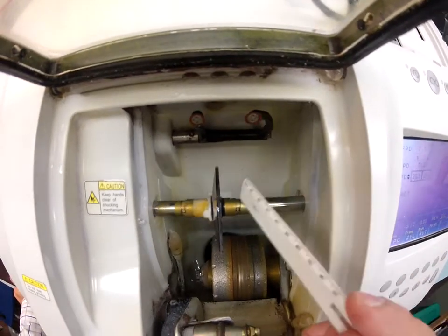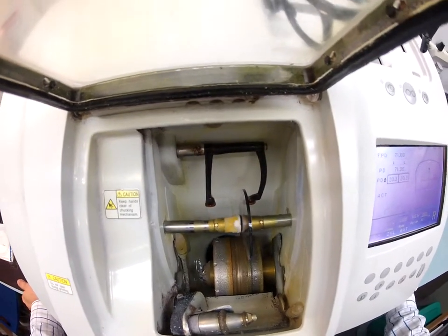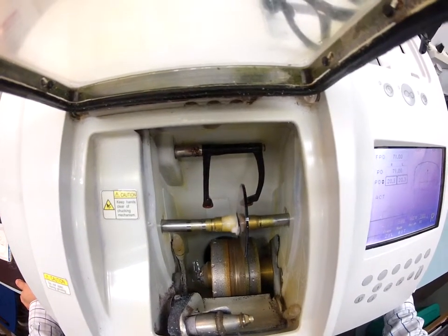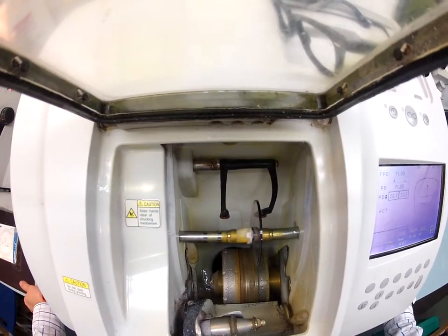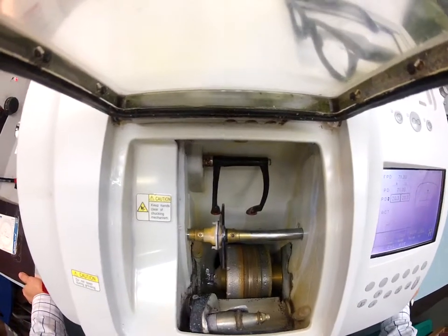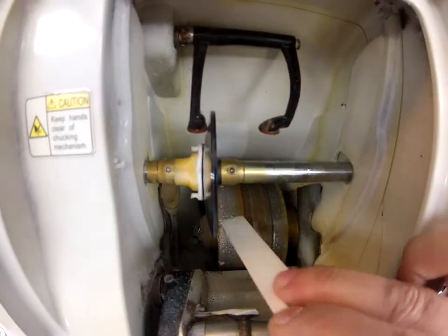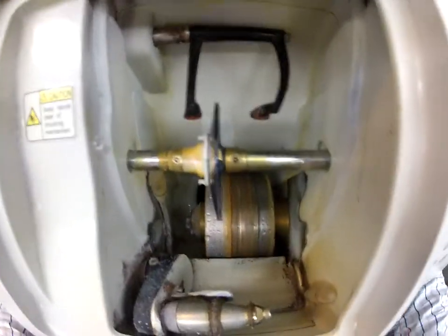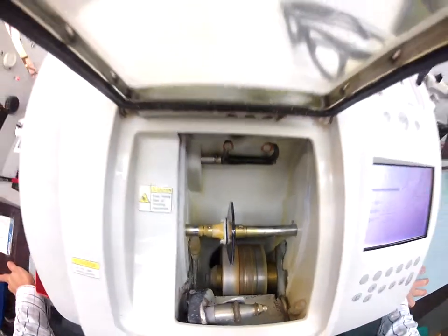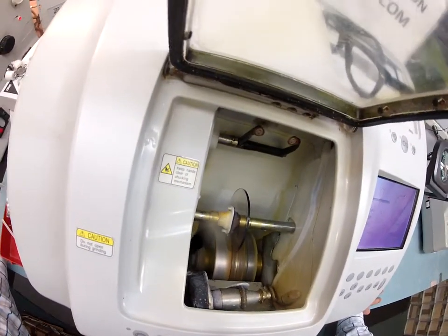The LMU is going to come down and trace the shape of your frame onto the lens to make sure your lens is large enough for this frame. It's tracing the concave side of the lens first, which is closest to your eyelashes, and then it's going to scoot over and trace the convex side of the lens — all the while using those calipers to measure thickness to know how to put the bevel into the frame. The actual cutting wheel is down here on the bottom; it's the lighter color wheel. That's what's going to grind away most of the polycarb. The wheel in the center with that channel is going to put the bevel onto the lens so it stays inside the bevel of the frame. I want you to see your lenses touch the cutting wheel.